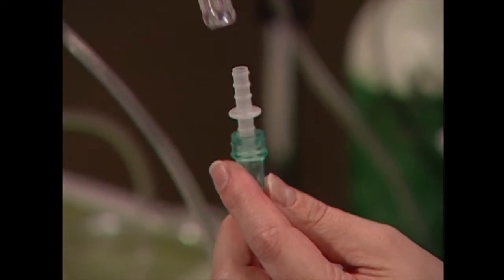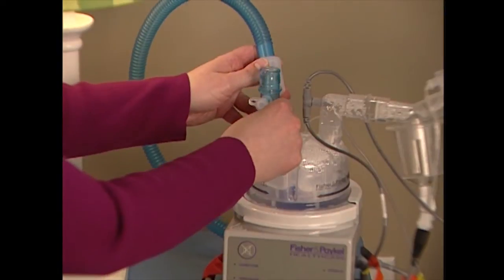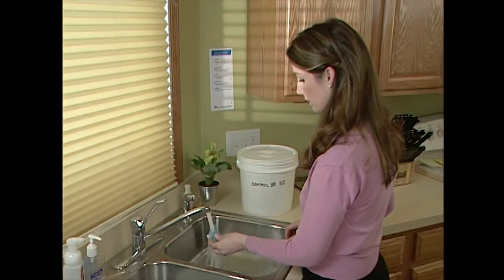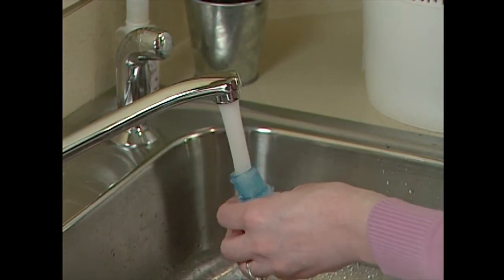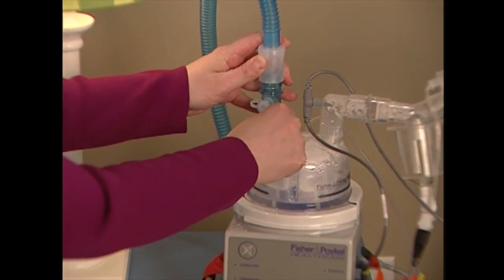To allow more freedom of movement, extension tubing can be attached to a simple mask with a specially designed plastic connector. If your child uses a ventilator, BiPAP, CPAP, or heated humidifier with their oxygen, a specially designed adapter may be used inline to connect the oxygen to these machines. This inline adapter needs to be cleaned weekly or during routine tubing and circuitry changes, using one of the recommended infection control methods. Replace the inline adapter when it becomes worn or cracked.